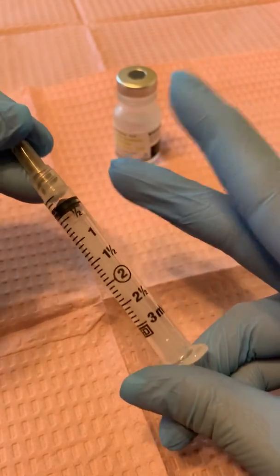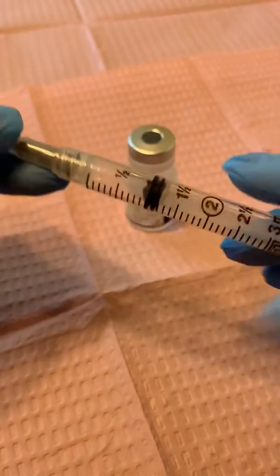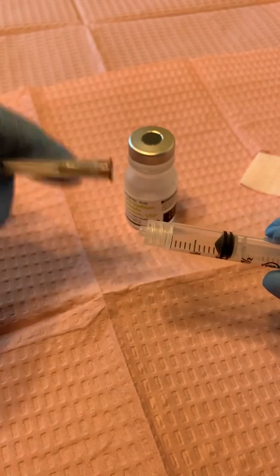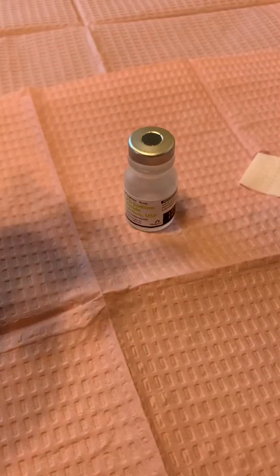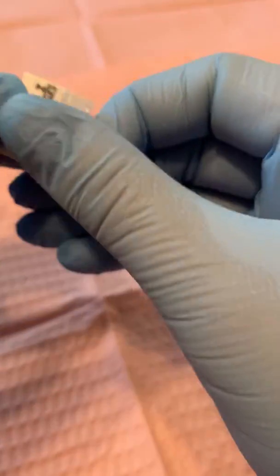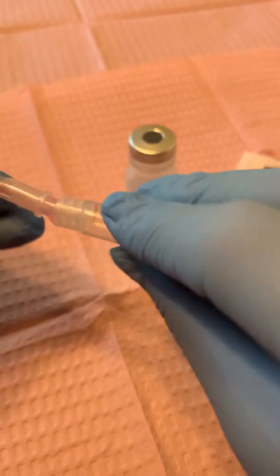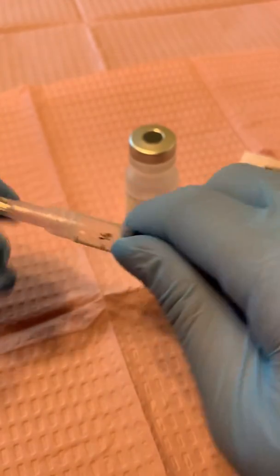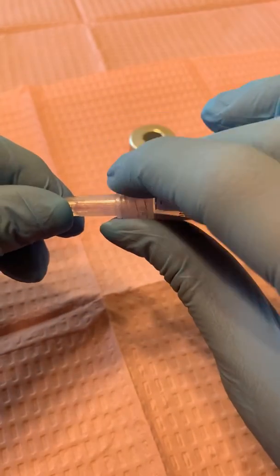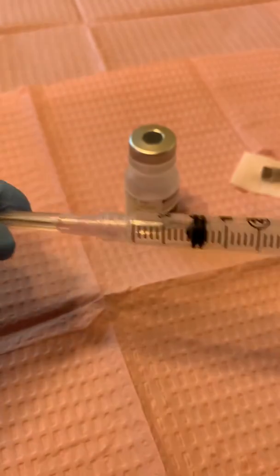I'm going to loosen up the plunger a little bit. Today's desired dose — we're going to go ahead and go to the 1. I'm going to take off this needle because this is the one I'm going to use on my patient — I'm going to set it on the alcohol wipe so I don't contaminate it. I'm going to grab my 18 gauge, open it, pull it out, and toss the packaging. This also is a luer lock, so I'm going to luer lock this in place. Remember: righty tighty, lefty loosey. Now this one has the luer lock, so I'm able to just go ahead and pull the cap — you want to do this in one fluid motion.